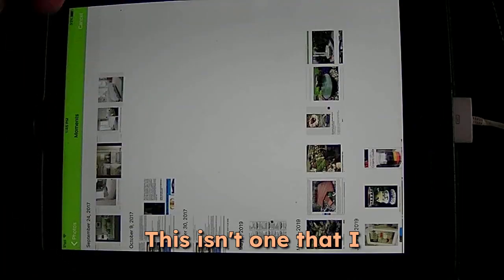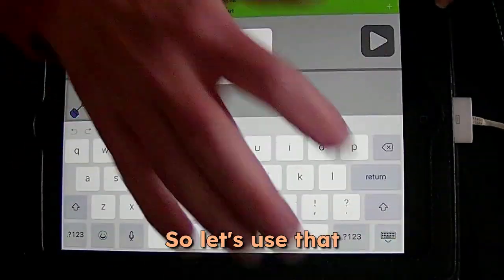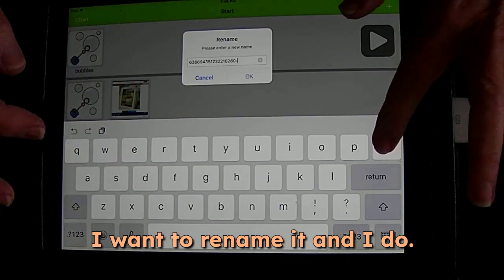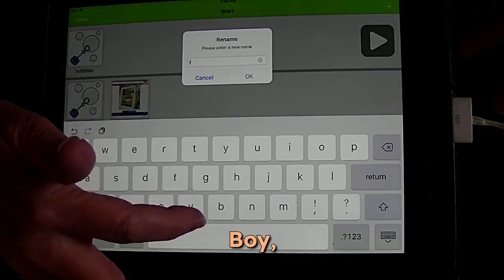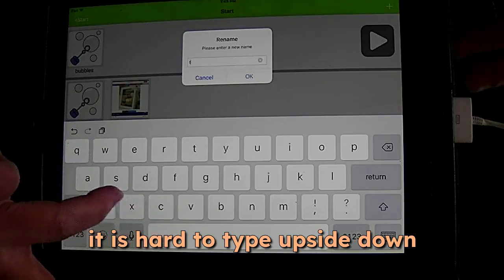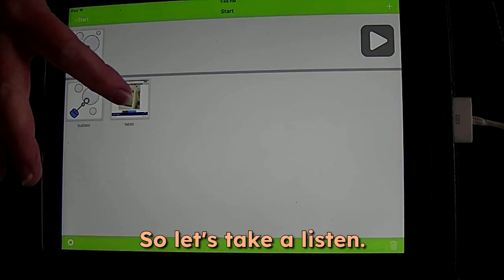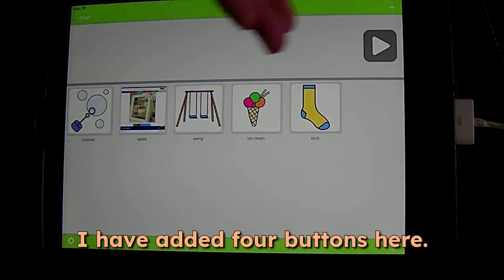This isn't one that I would prefer to use, but it's right here. So let's use that. And then it's going to ask me if I want to rename it, and I do. So I'm going to name it Tablet. Boy, it is hard to type upside down. And hit OK. And there we have it. So let's take a listen. Tablet. It's working. I have added 4 buttons here.